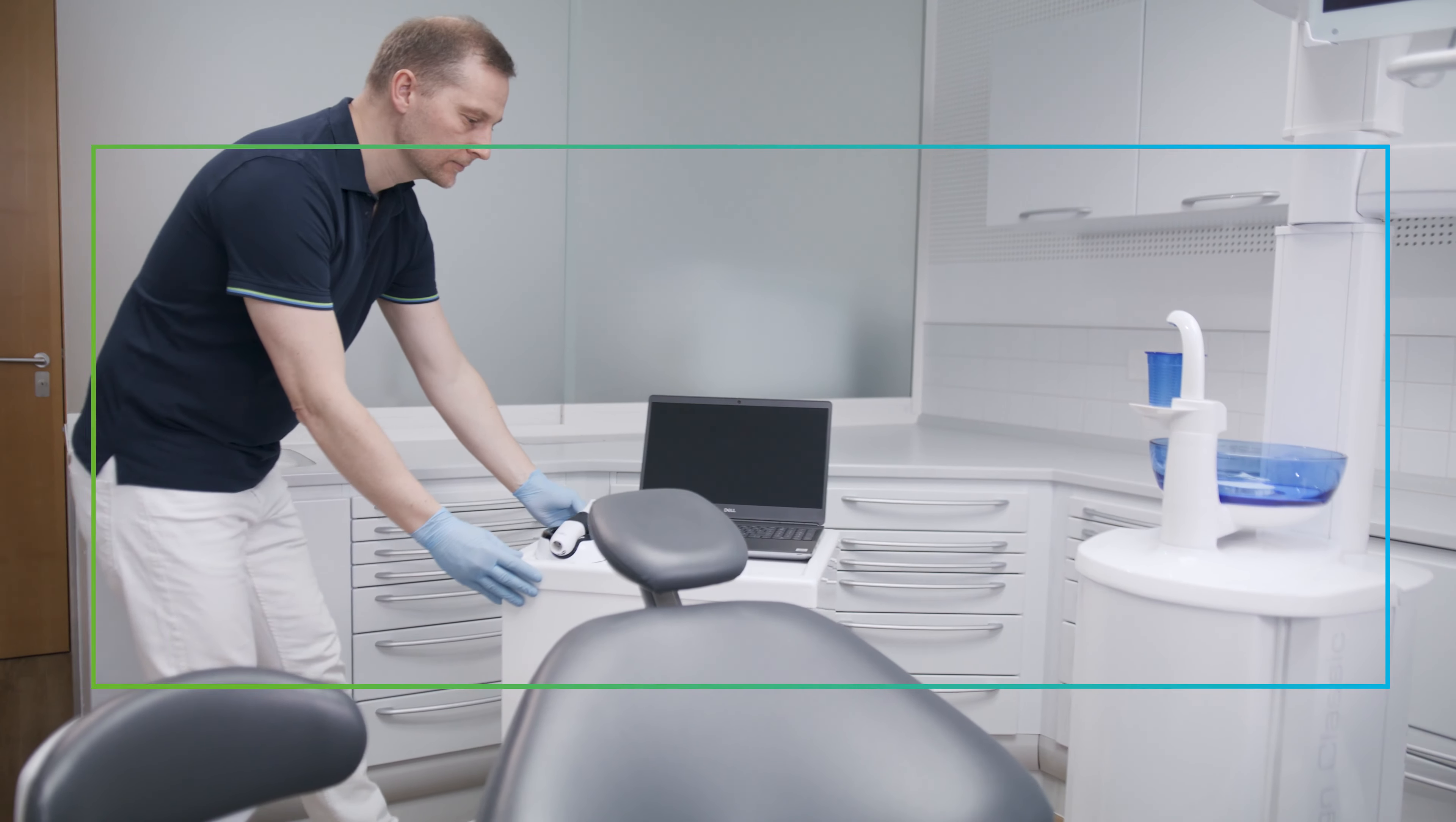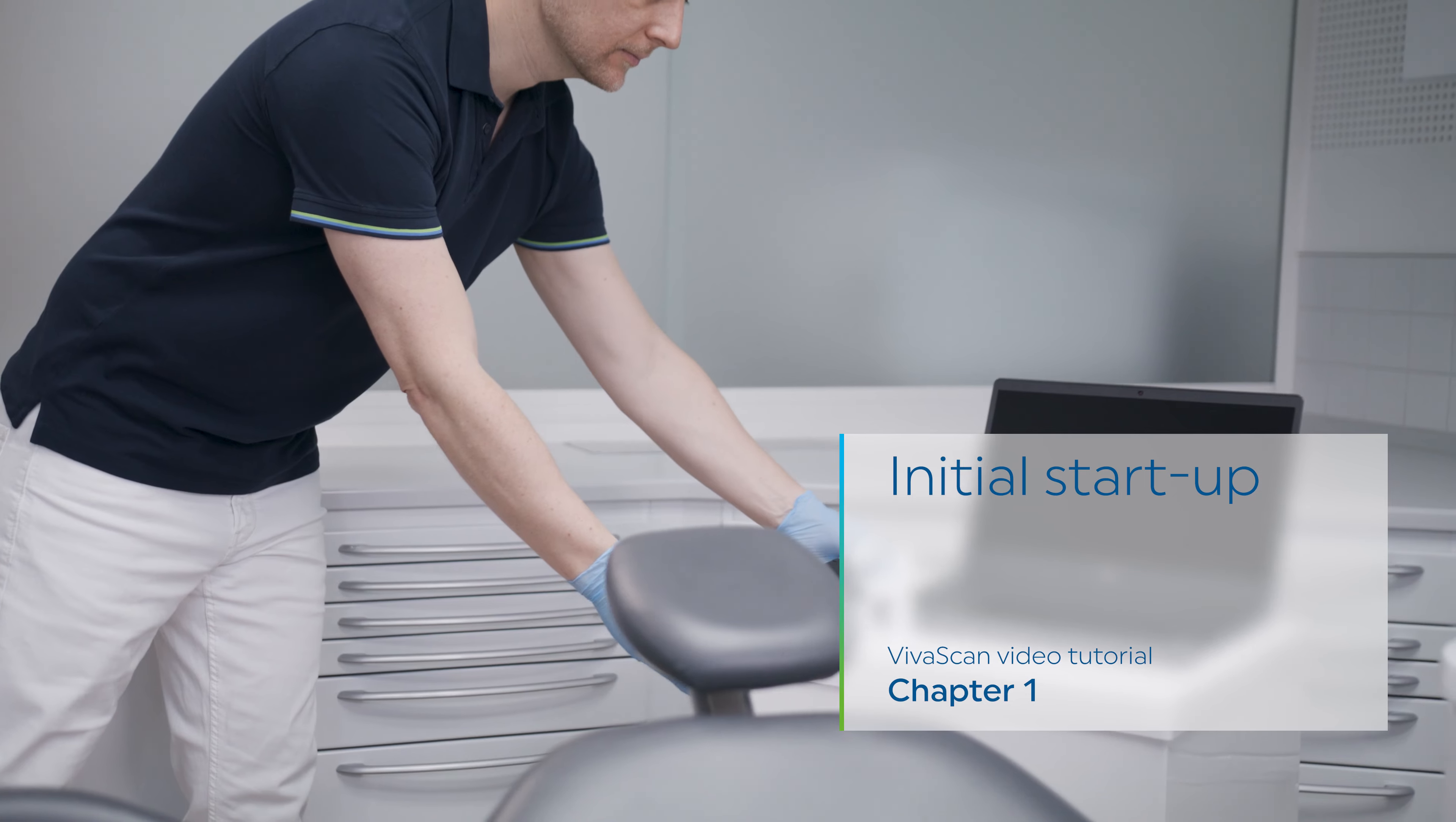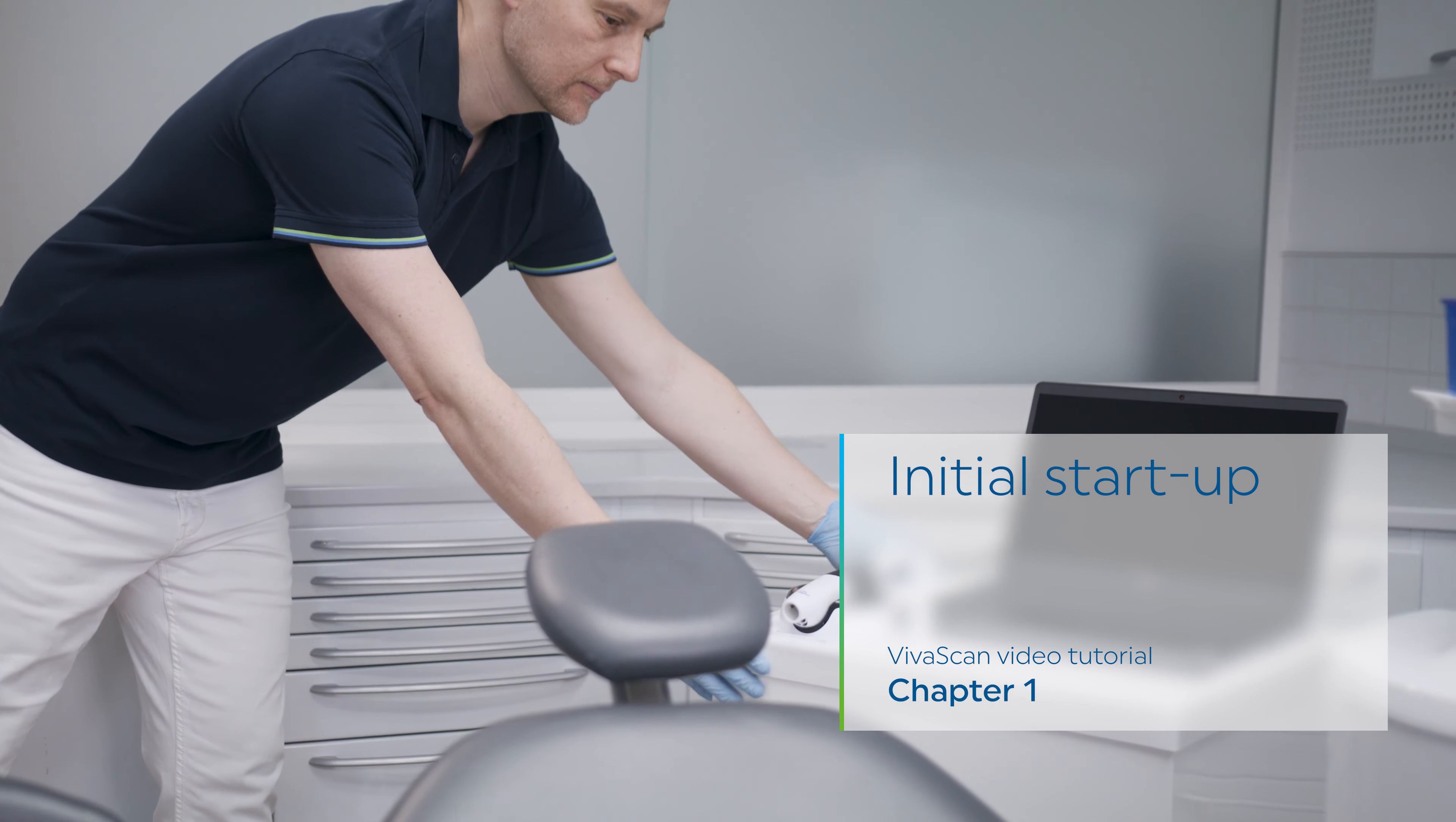Choose a suitable place for your VivaScan. The scanner should ideally be placed close to the patient to ensure a smooth workflow.